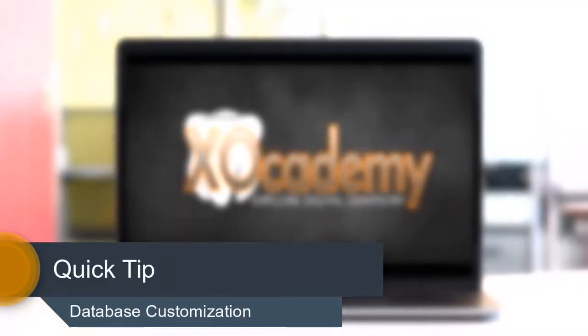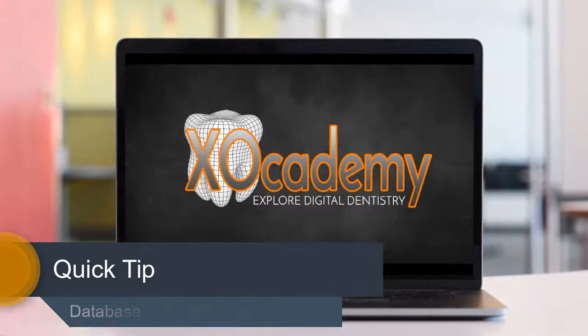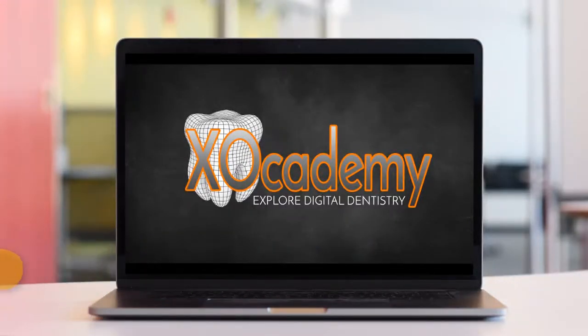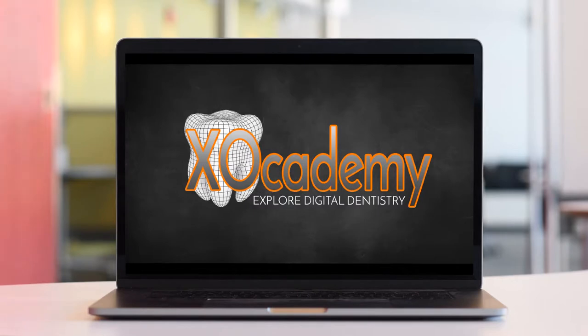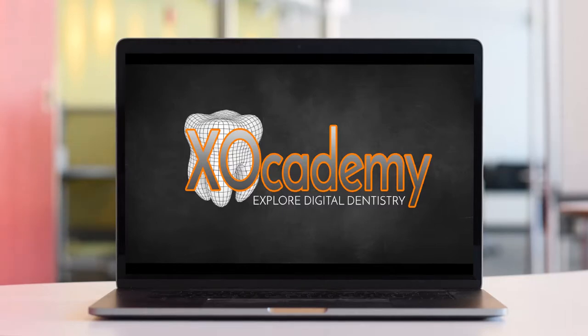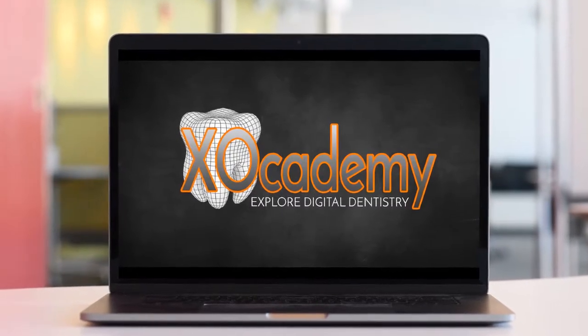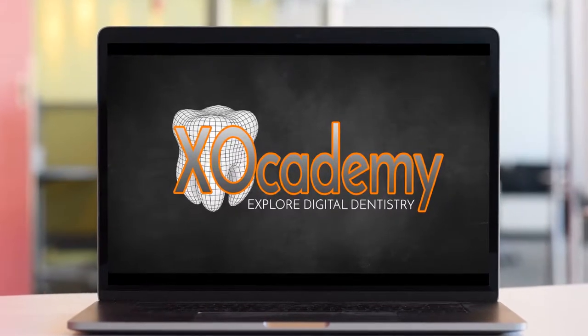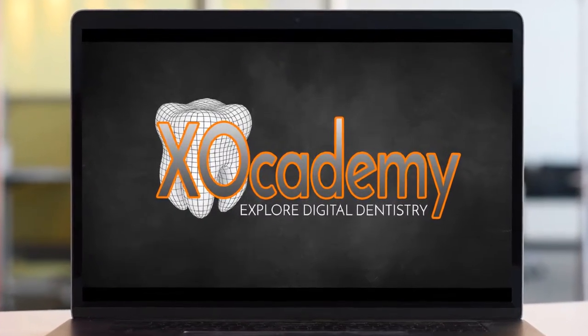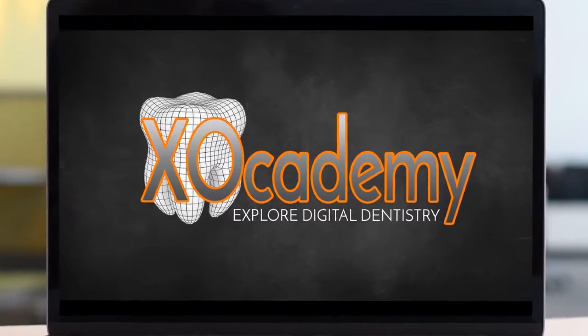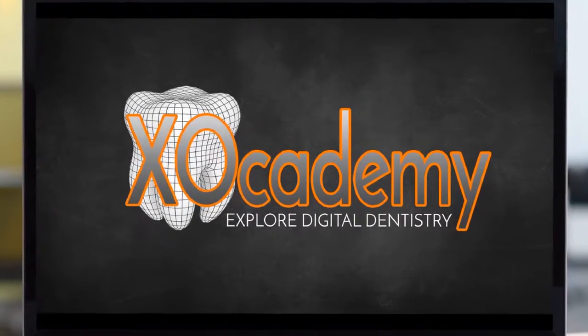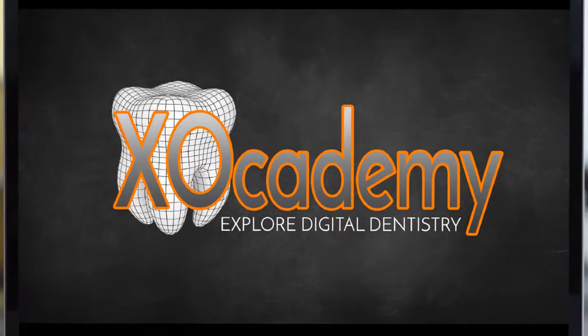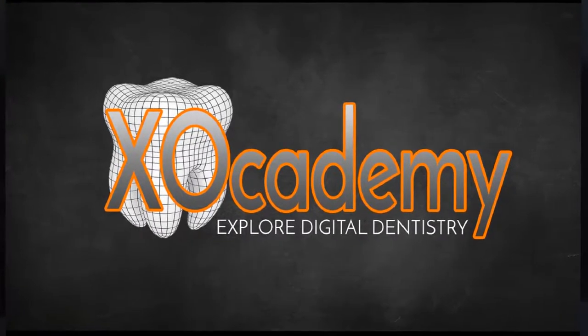Hello ExoCademy. In this course I'm going to review some setting options that I like to implement before I install a new version of ExoCad. The next release of ExoCad is coming up soon and so I want to make sure that my database settings are correct so that when I install the new version I'm not having to reinstall new databases or have files in different locations.